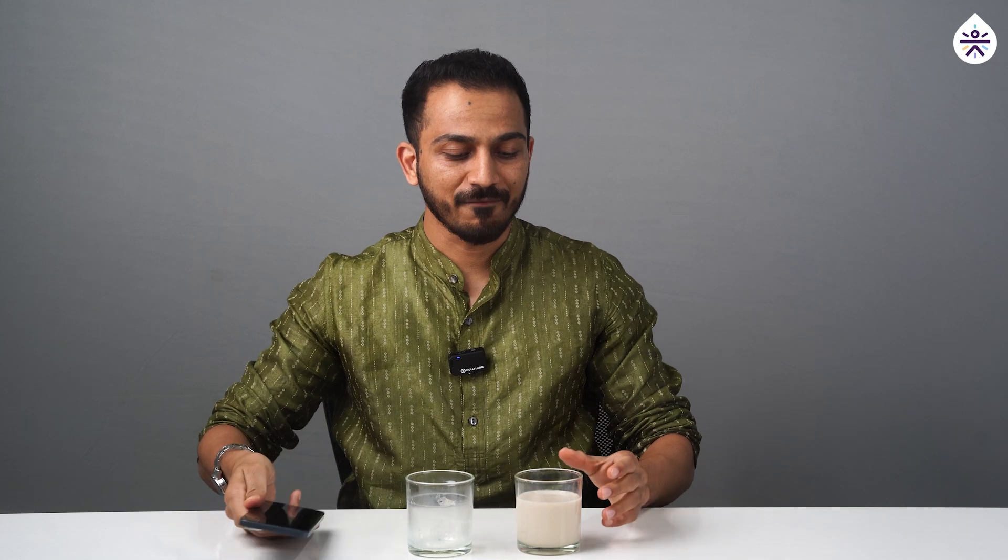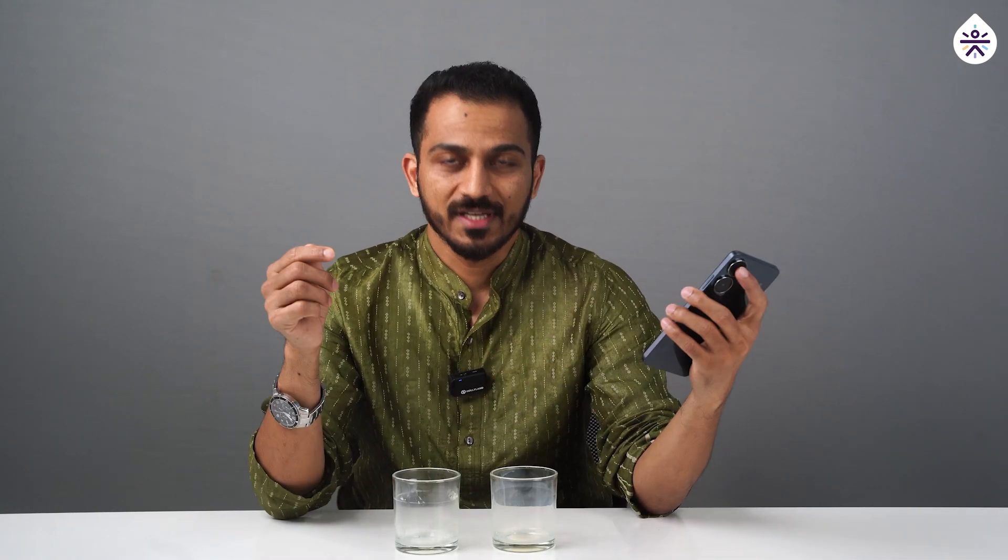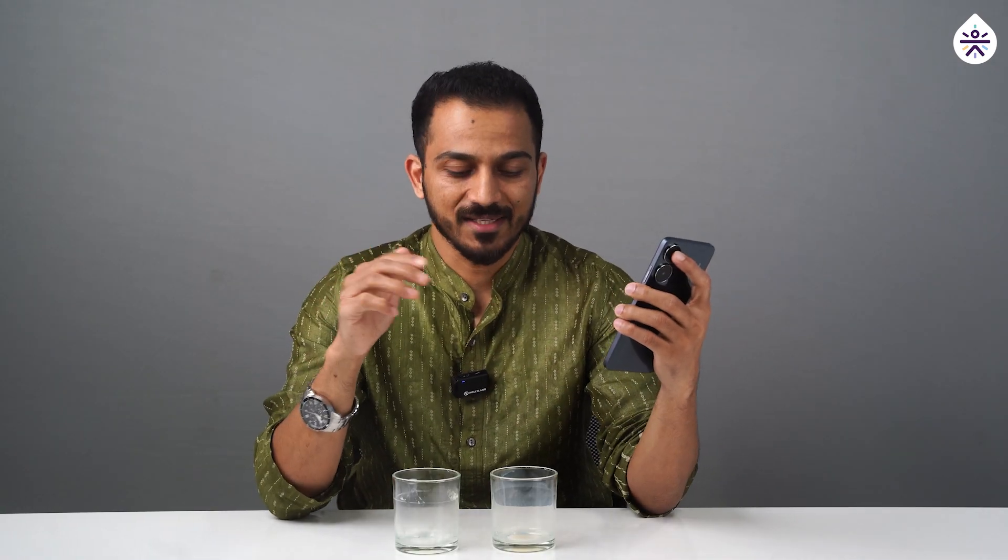So it's time to have soy milk and then see the effect of soy milk on my sugar levels. I'll have this. Okay, so it's been 90 minutes since I had unsweetened soy milk.